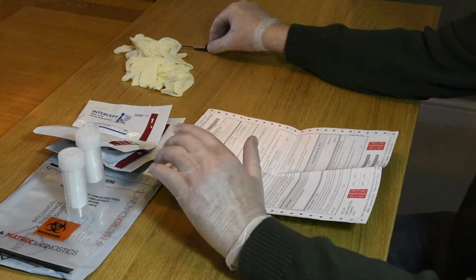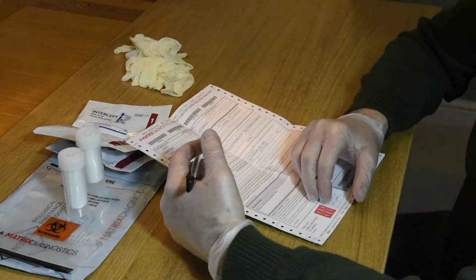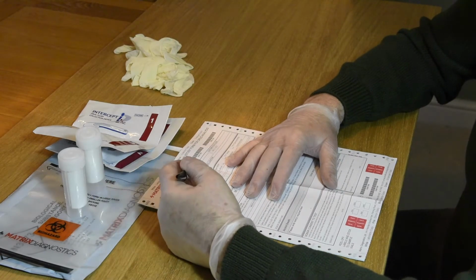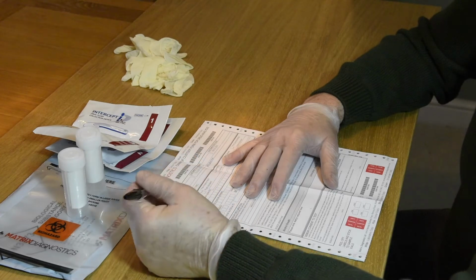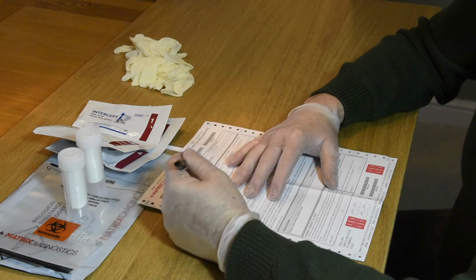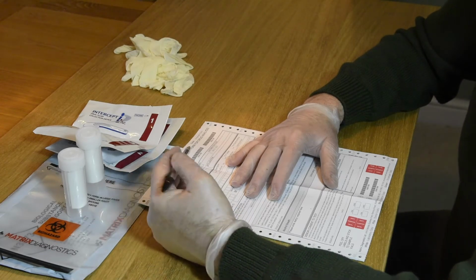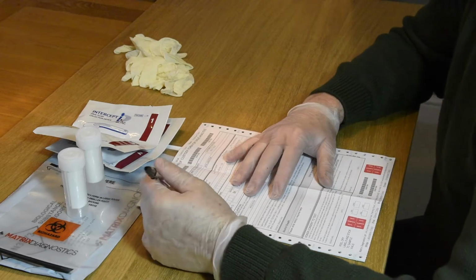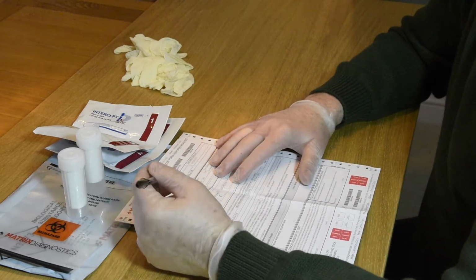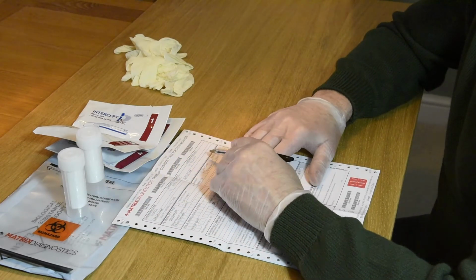So this is in four parts, and I'll explain where each part goes at the end. So at the top we have customer code, customer telephone number, customer postcode, and the customer name. Now you'll find that when you get these kits that those are already filled in. Customer name is our name, that's the resellers of the drug kits. The only thing you need to worry about to fill in on the top part of the form is site location, so that will be your company name and where you're located.